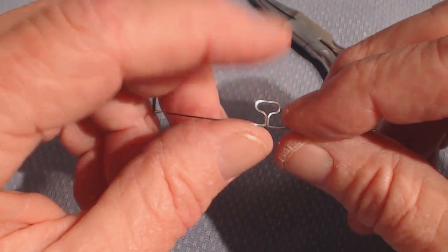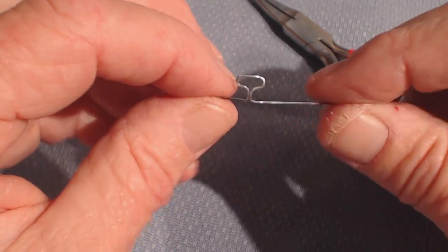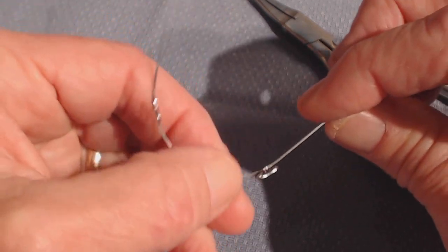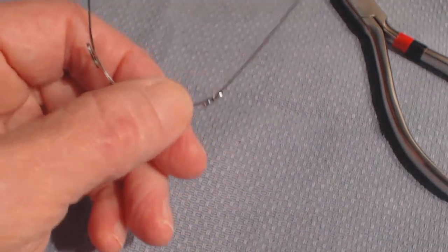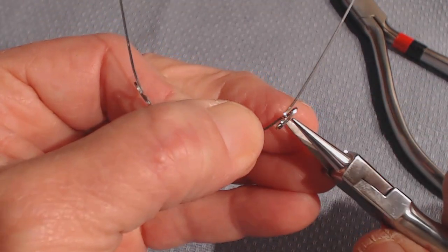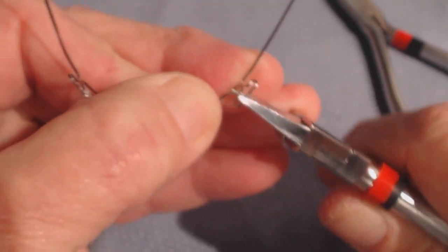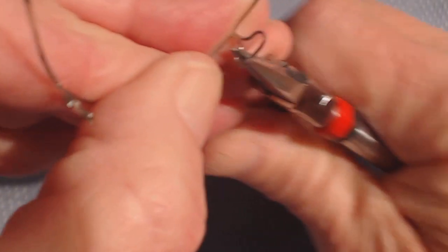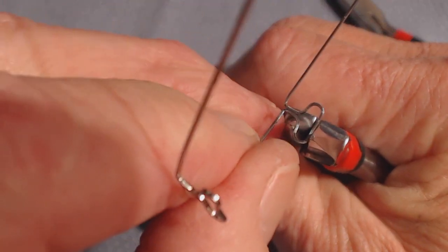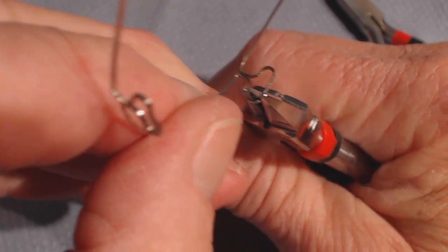This is an extra-oral bend. Doctors, do not try this in the mouth because you can't see what you're doing. Now I want to show you the intrusion bend with a light wire plier. I'm going to put the plier around the loop right here and squeeze it together. Some instructors talk about doing it this way. I'm telling you, this is an exceedingly dangerous way to do this.